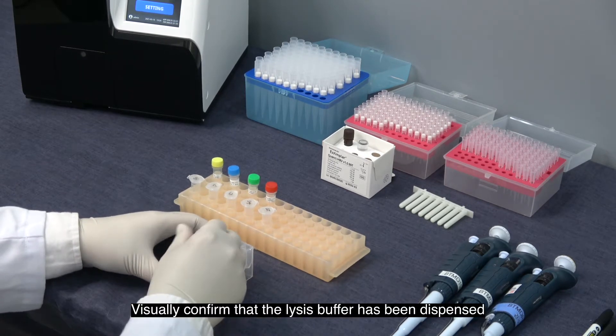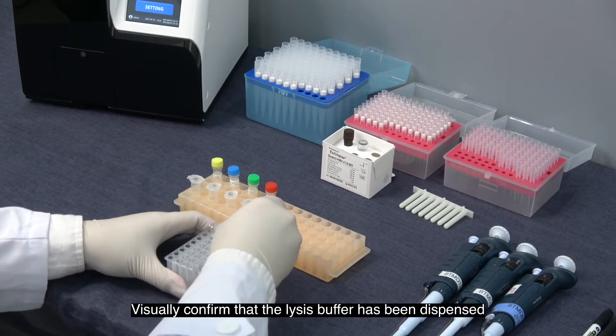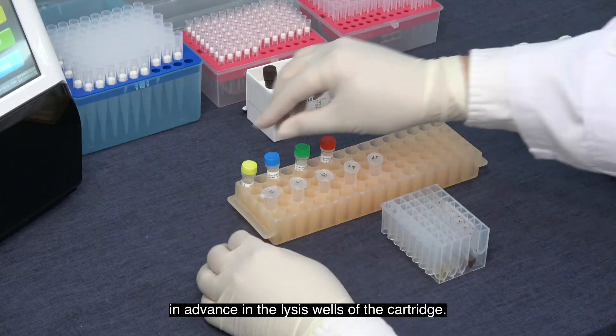Visually confirm that the lysis buffer has been dispensed in advance in the lysis well of the cartridge.